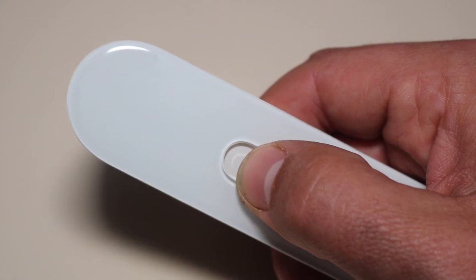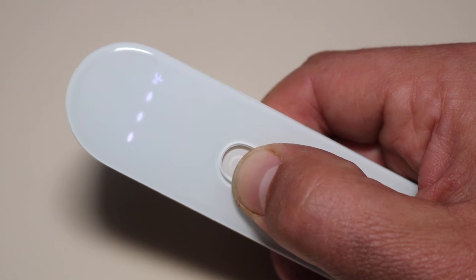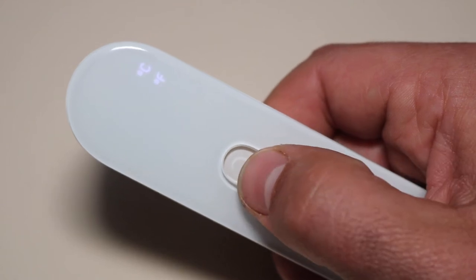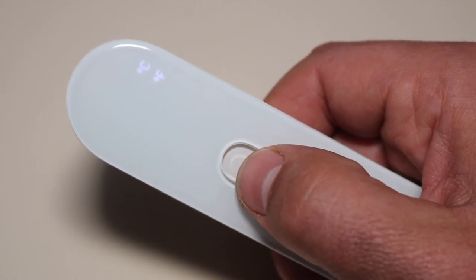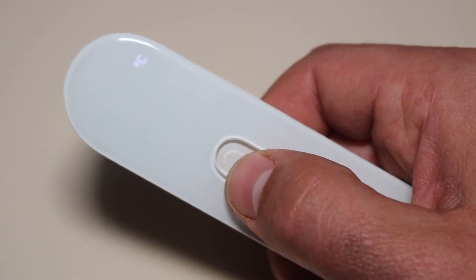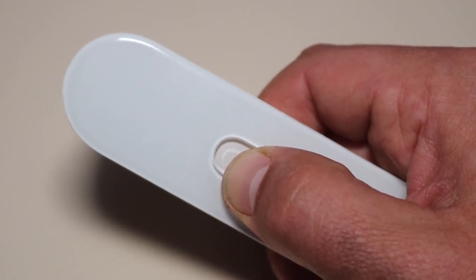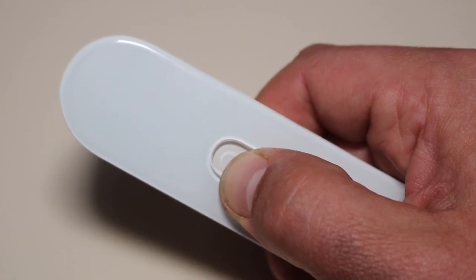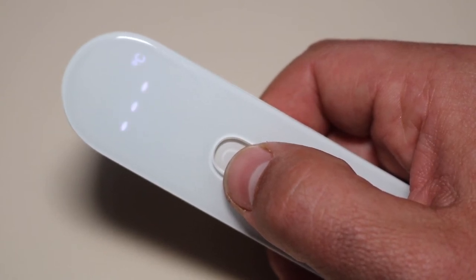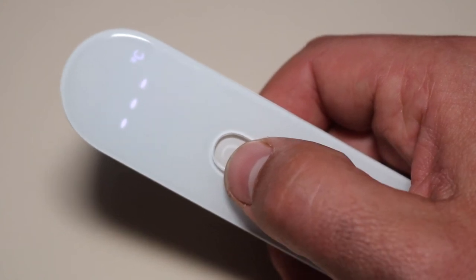What you do is you hold down for eight seconds, then it will give you the option of Celsius or Fahrenheit. Select that, and then you long press. Now when you click it back on, it will be Celsius. So that is an easy way of changing it from Celsius to Fahrenheit.